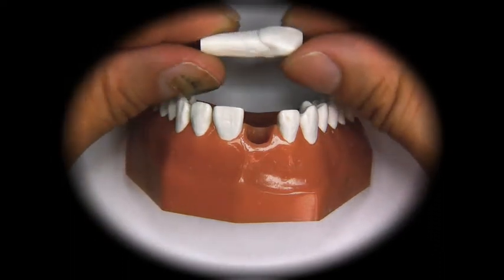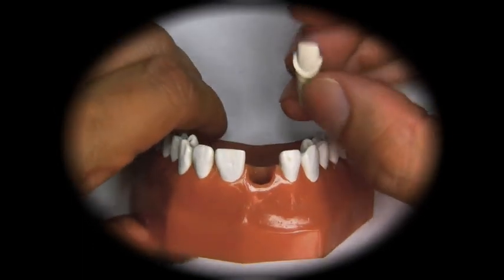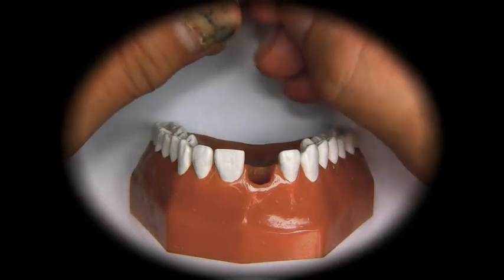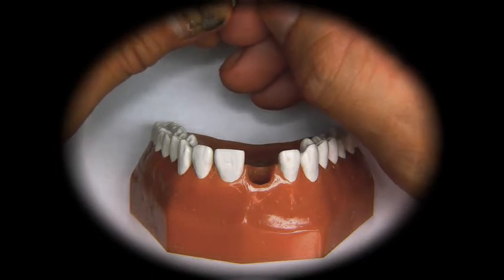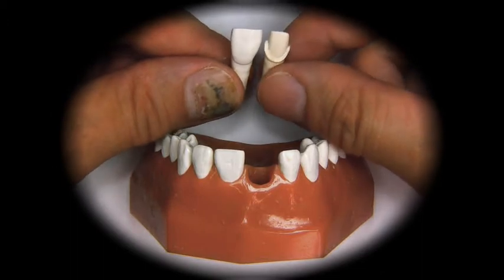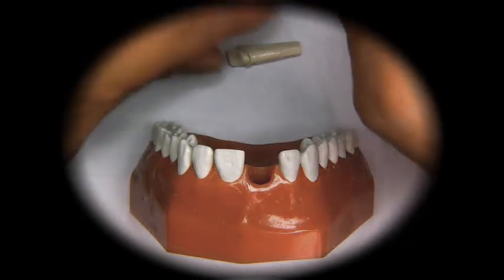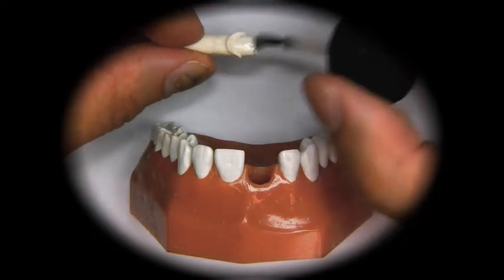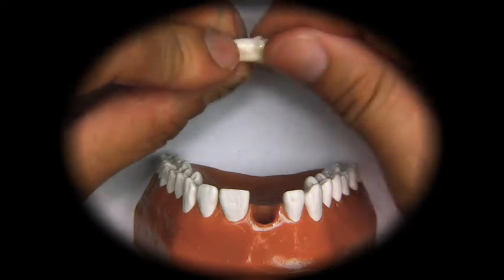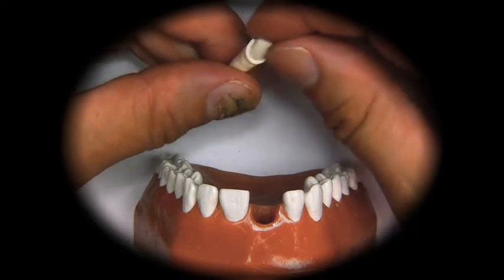After the removal of this tooth, we're going to take the tooth, which is called a die, and place it inside the model to replace this tooth. This preparation would be what we get after the dentist cuts down a tooth. The first step we will take is to apply some lubricating material — take a very little bit and apply it to the die. We'll remove some more from the die with our fingers, because if we leave too much lube on the die, we will have a problem of it falling off the die too easily.